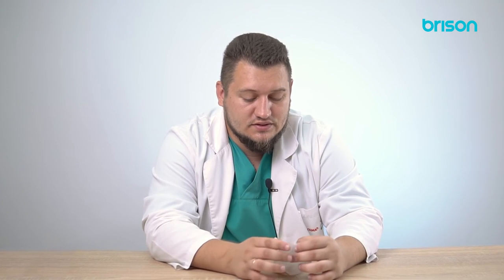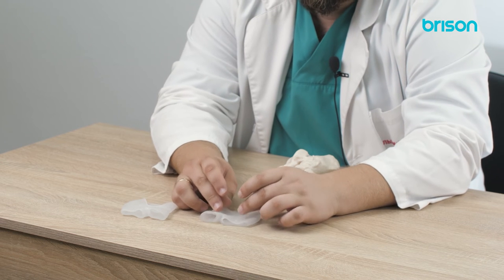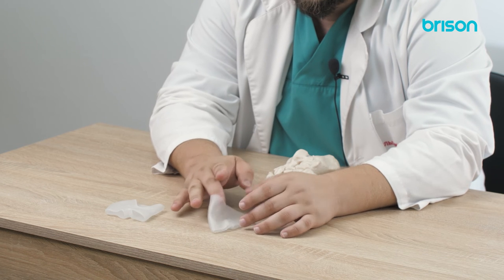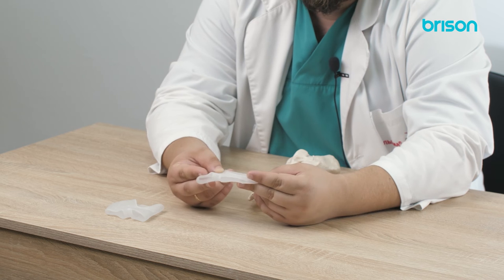The orthosis is easy to clean, but in areas where the foot sweats, it is better to use fabric versions of such an orthosis. Also, when playing sports, it is better to use a fabric orthosis for better fixation. We do not need rigid fixation if the patient is not running. All we need to do is take the load off if this is an elderly patient. Due to the presence of holes in the lower part as well as softness, all this cushions the load. Such orthosis can be used for elderly patients. The brace is very convenient, easy to clean and disinfect, and will reduce the load during offensive movement.